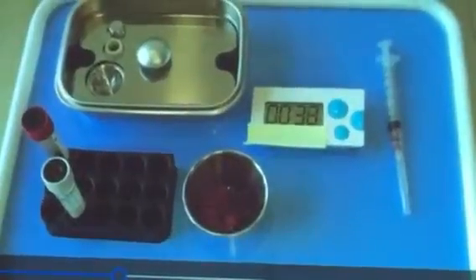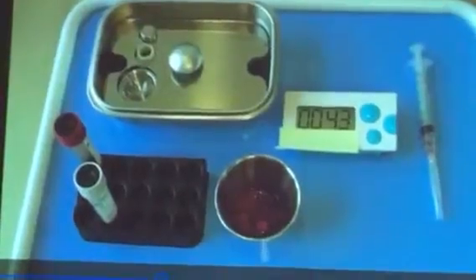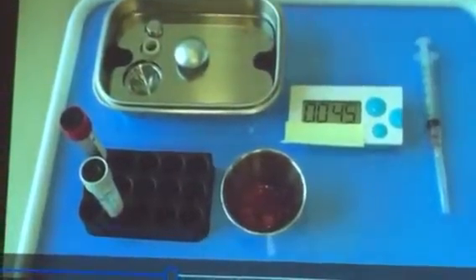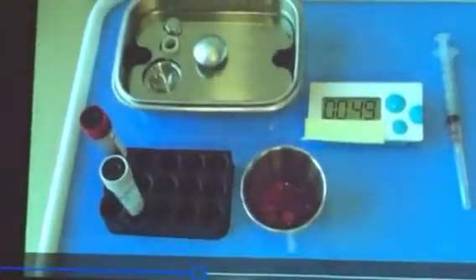This is how I do it because I don't want to wait 15 to 20 minutes. Where do you get the compression tray? When you buy the machine, you can ask them — they'll put it in the package for you typically.